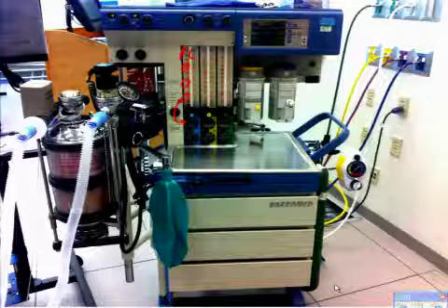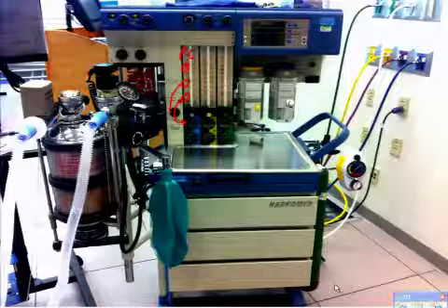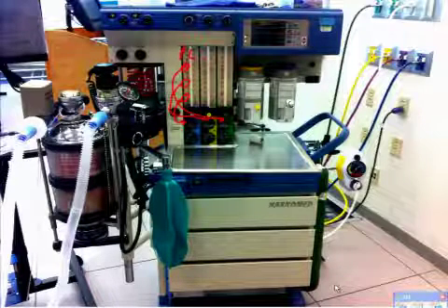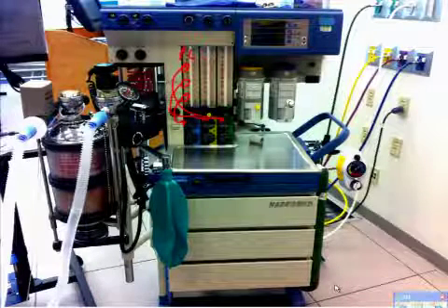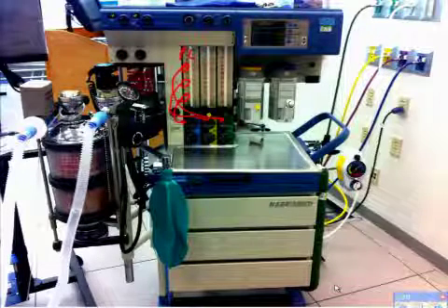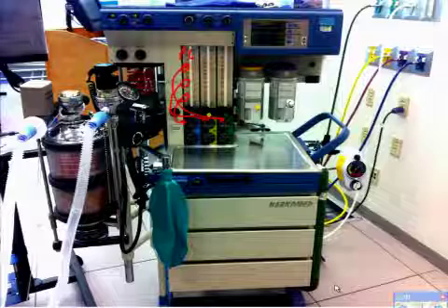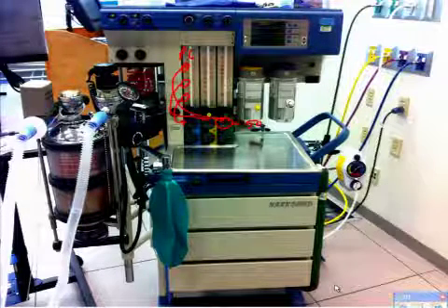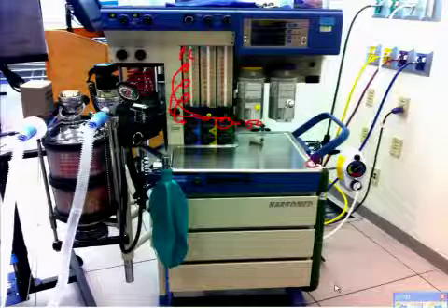So this is going to immediately feed, each one of these, into this pressure gauge here. All right? So there's nothing in between other than just a straight hose from your inlet to your pressure gauge. That's why it will read 50. Okay? Now over here, you've got your O2 cylinder.